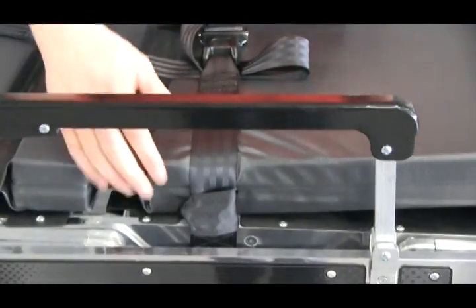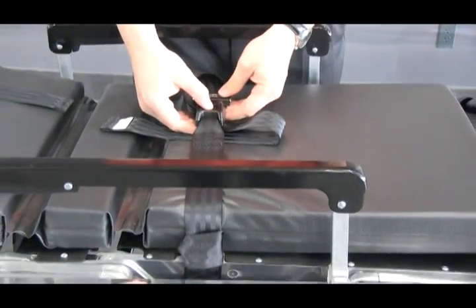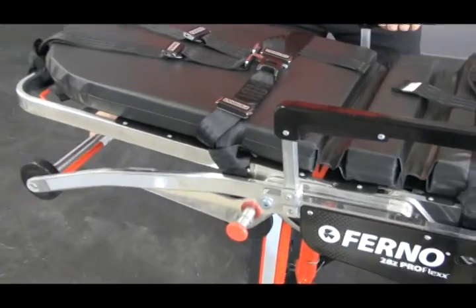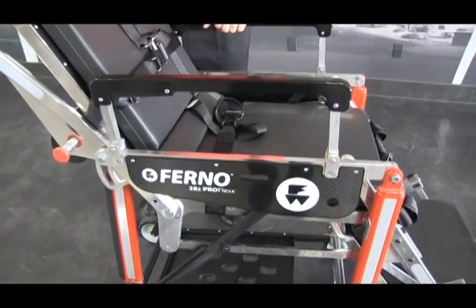The chest restraint goes through the slot in the backrest. The waist restraint goes through the slot in the seat panel. It's important to keep this restraint attached at all times, even when the patient's not on the cot — that's when you change the chair position.